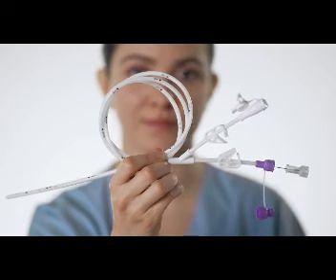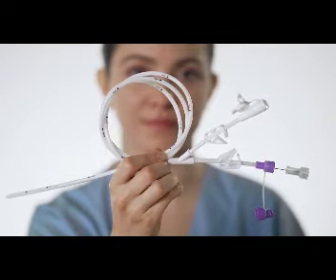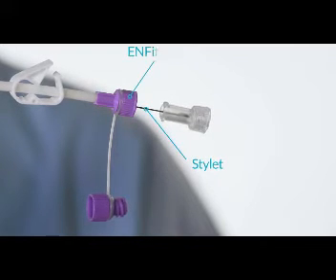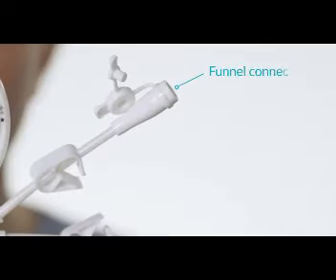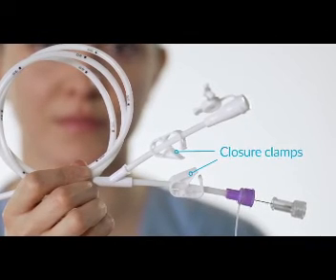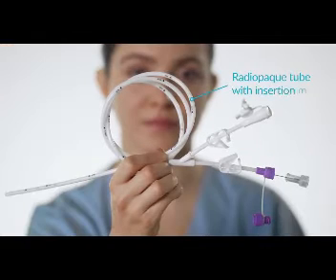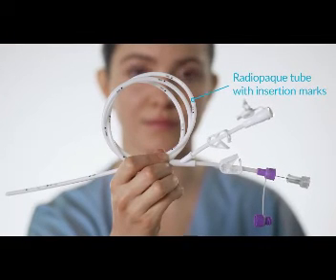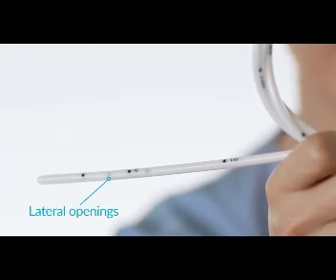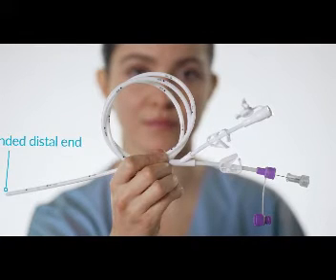Compact Dualport tube is 120 cm, 14 French tube. It consists of seven parts: a stylet to facilitate tube insertion, an Enfit connector specifically designed for enteral feeding, a funnel connector compatible with most drainage devices, two clamps to facilitate gastric drainage and aspiration, a soft fully radiopaque polyurethane tube with insertion marks to confirm the proper position of the tube, four lateral alternate openings to ease the flow of fluids and prevent the risk of tube obstruction, and a rounded distal end for non-traumatic tube insertion.